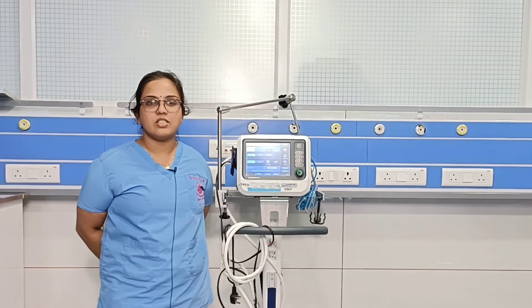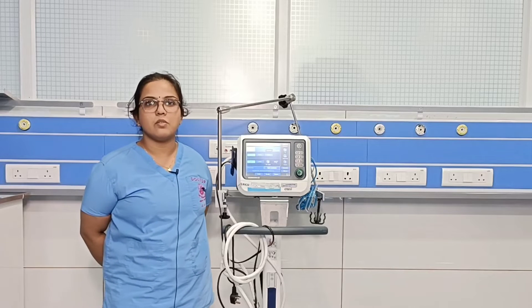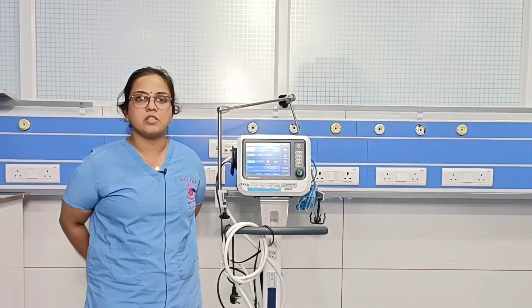Welcome to ETCM, the Emergency Medicine channel. In our series of videos on ventilators, today we will be discussing basic modes of ventilation — what are the basic modes available and how to select them.